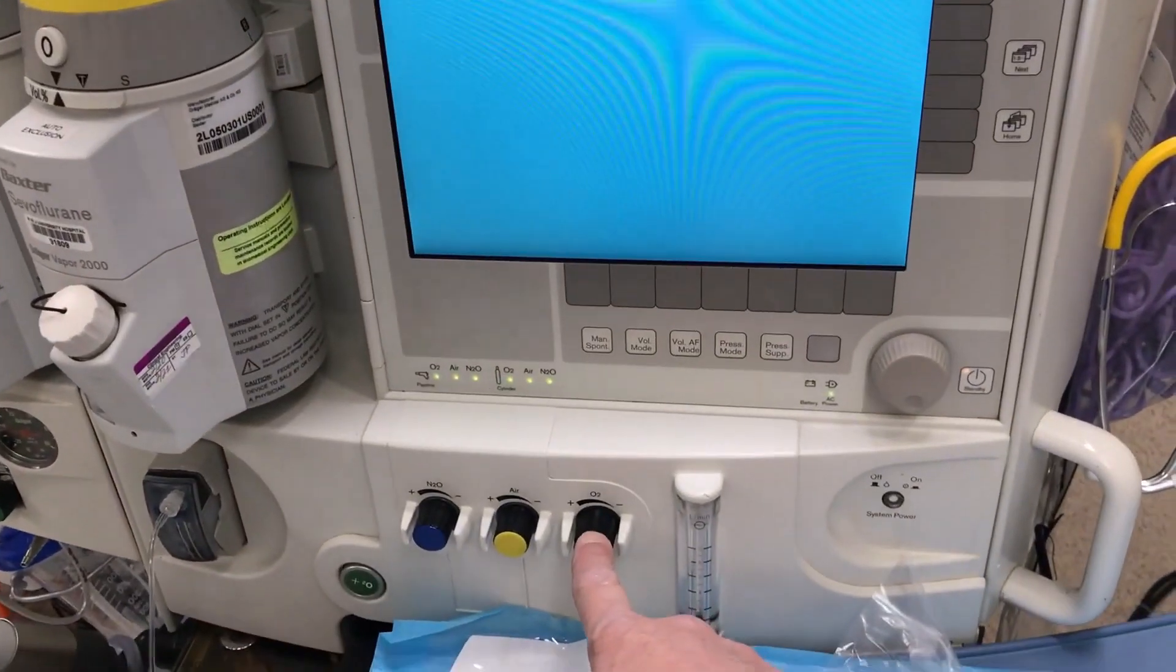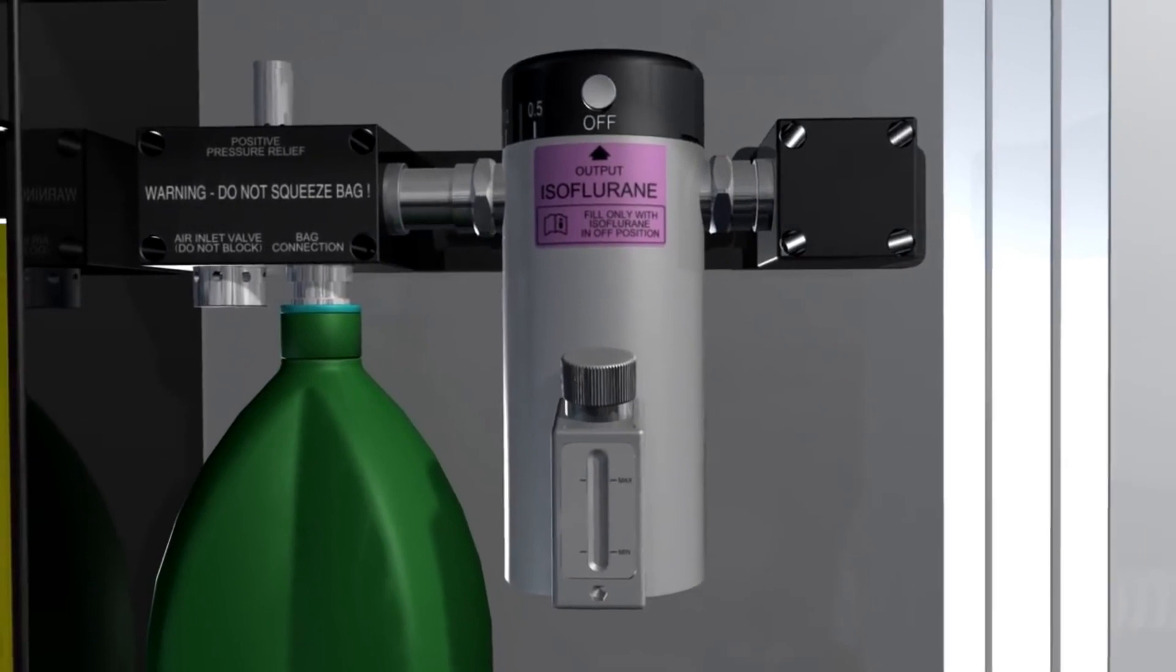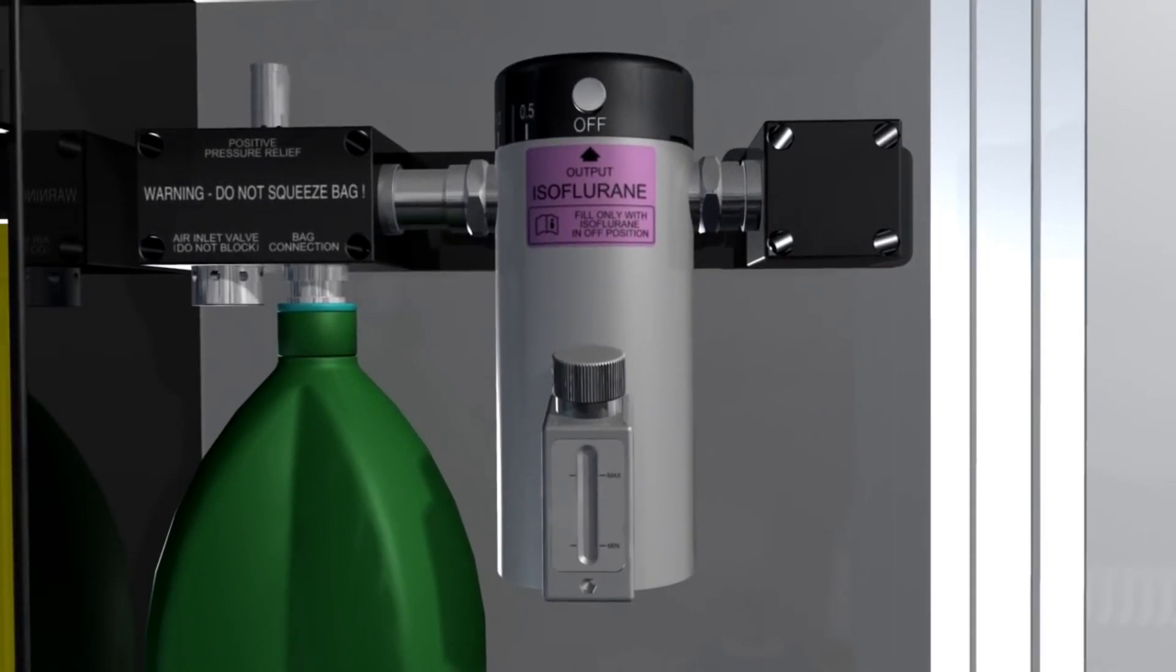There are generally two types of vaporizers: plenum and drawover. First, we will look into plenum vaporizers.